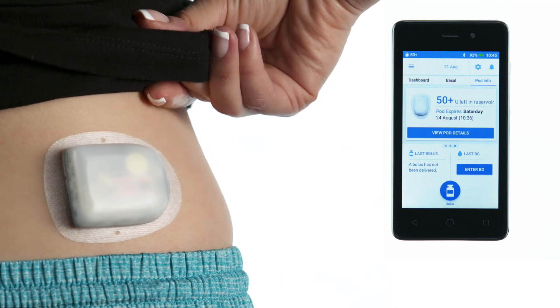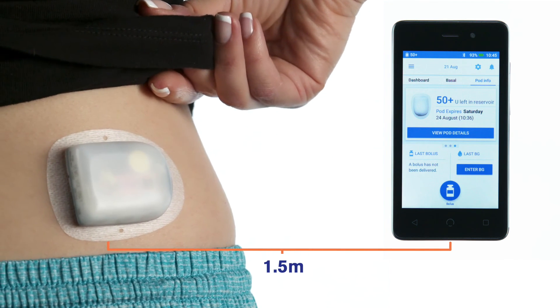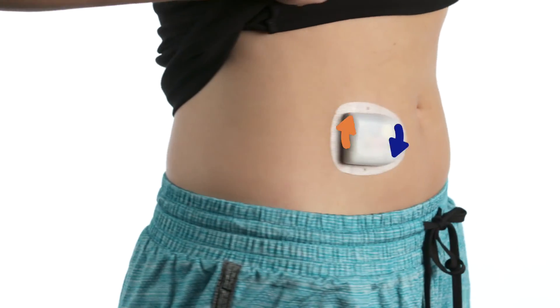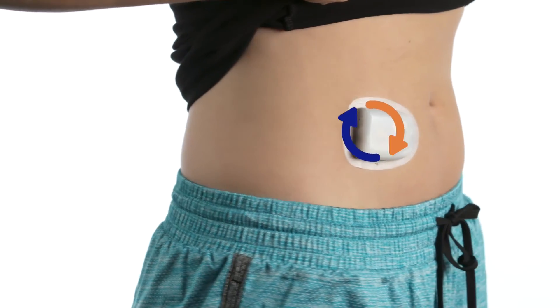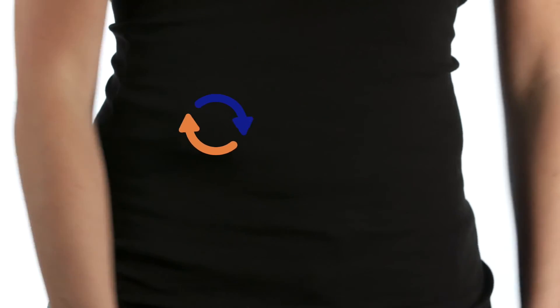After activation, the PDM must be within 1.5 metres of the pod for communication. Once programmed, the pod does not need to be within range of the PDM for basal delivery to occur.